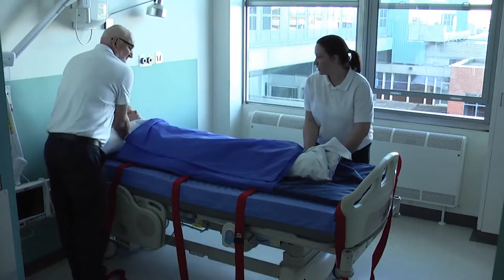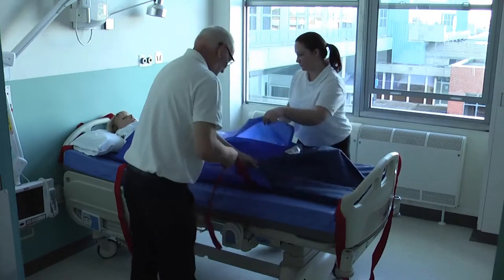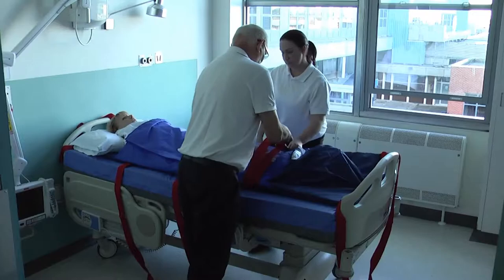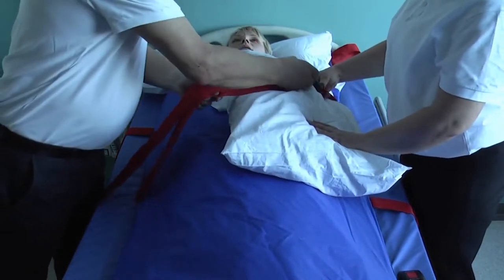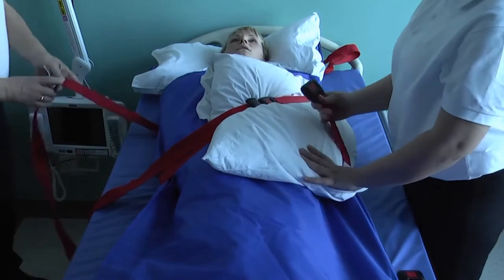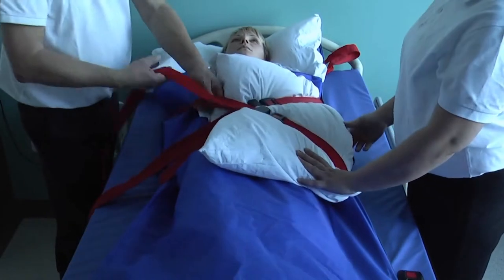Remove the slide sheets from under the user before wrapping the slide sheet over them. Place a pillow under their head and place their feet into the pocket. Secure the user's feet using the seat belt style foot strap. Position the spare pillows across the chest if enough are available. Tighten to cocoon the user on the ski slide pad.